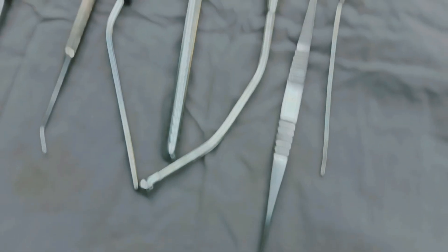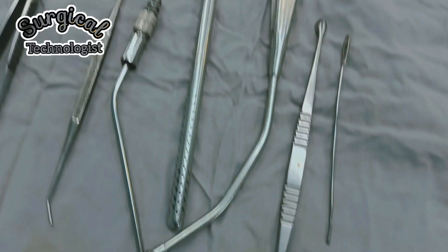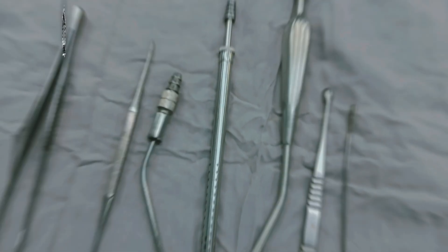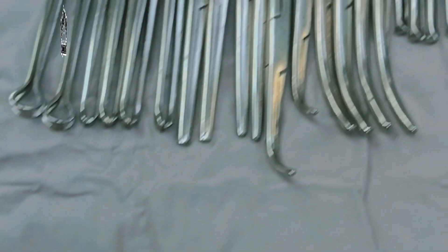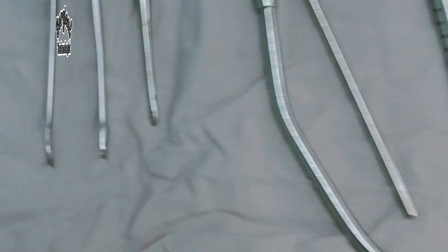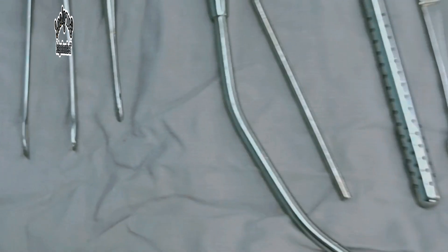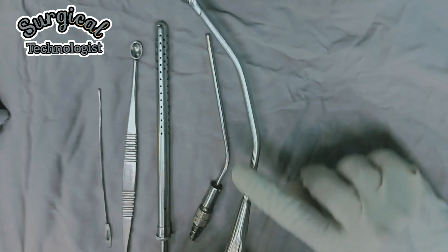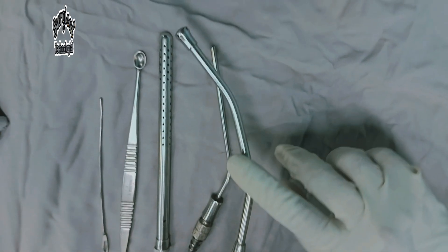Hi everyone, I hope you are all doing well. Today I am excited to share another new and interesting video with you. In this video, you will see the laparotomy basic instrument set and their uses. Make sure to watch the video till the end.